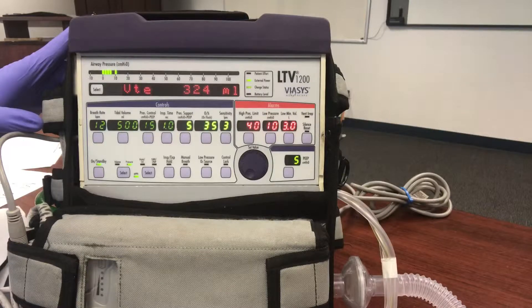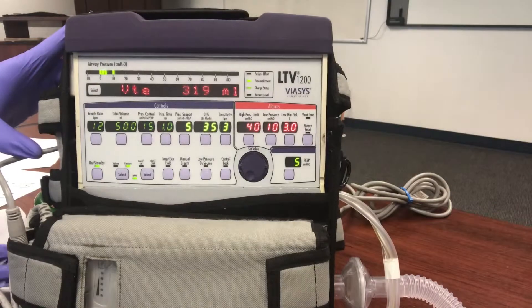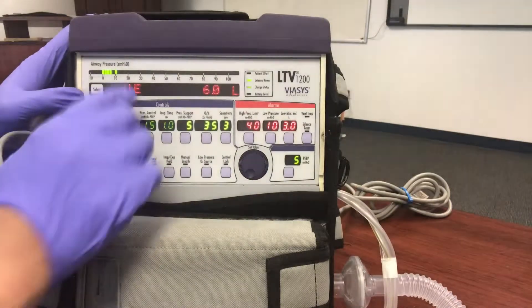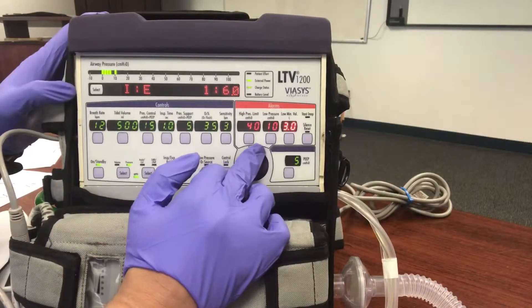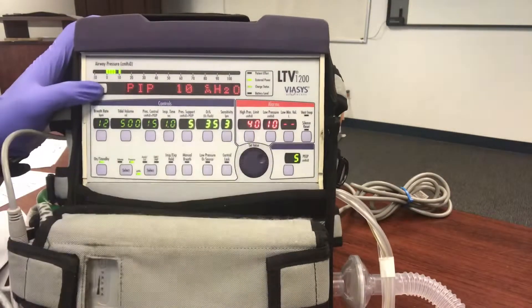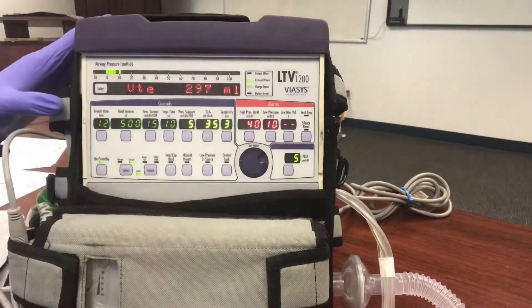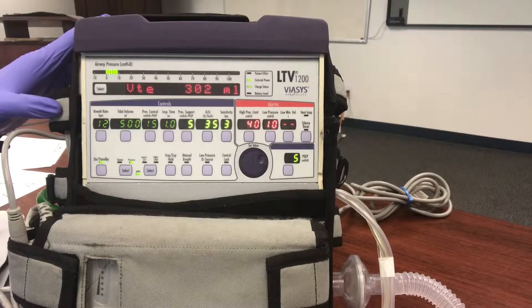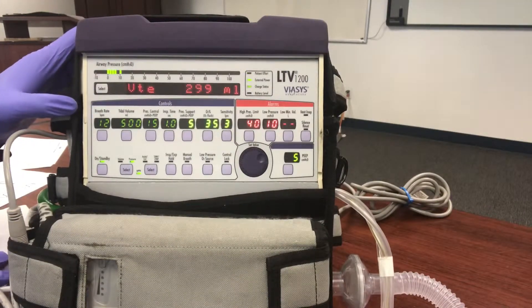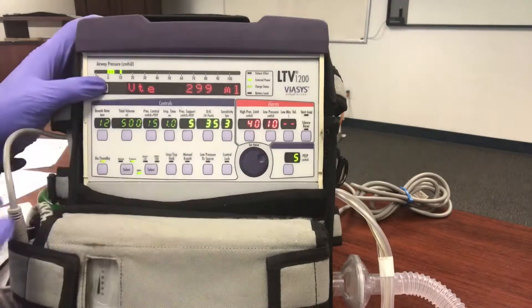If you have an excessive leak, a medic told me about this — it just kept beeping and wasn't even showing any volumes. Go ahead and dial down that low minute ventilation alarm, because as long as you know they're getting adequate tidal volumes, don't worry about the leak. That mask will burp. You may not get a good seal — these aren't made for BiPAP, they're made for ventilators.